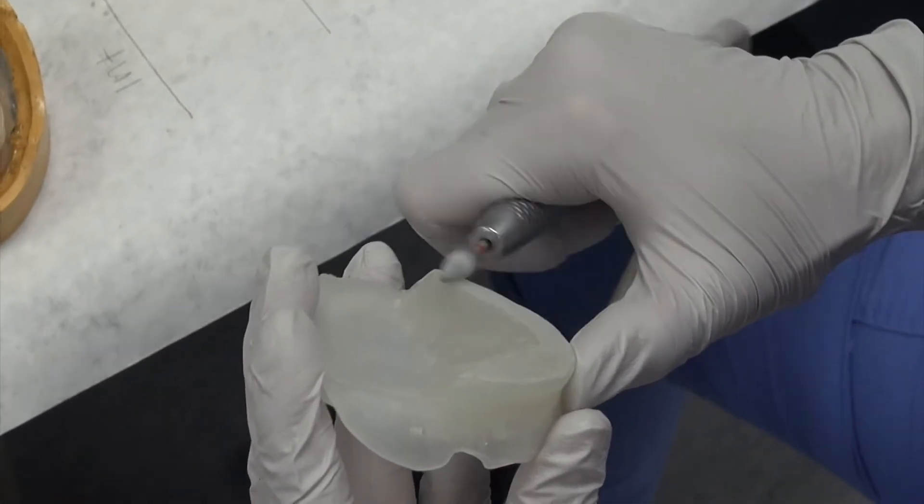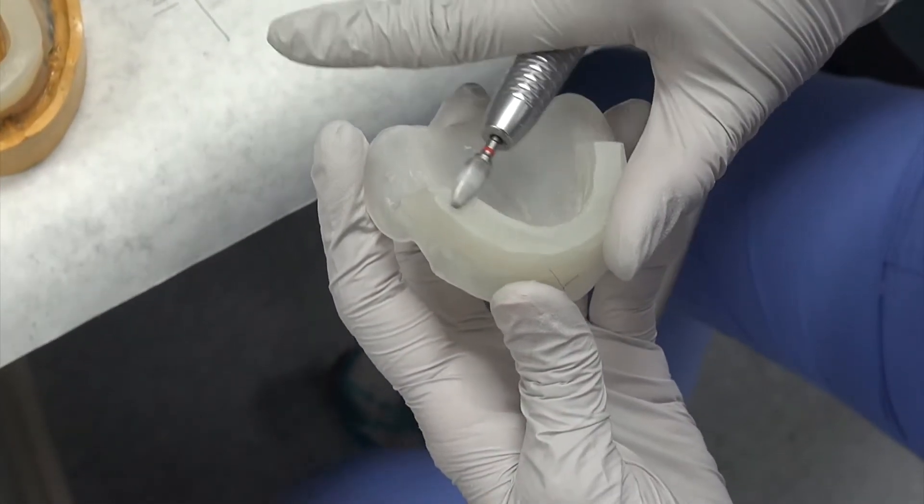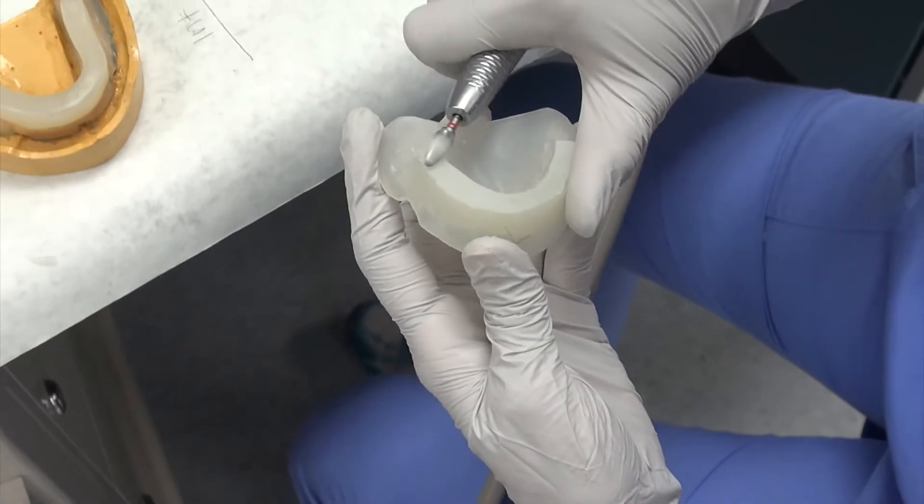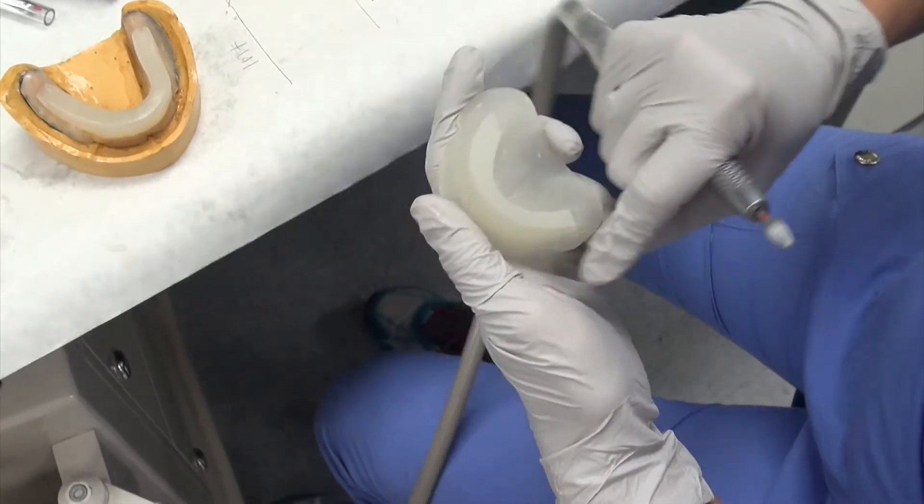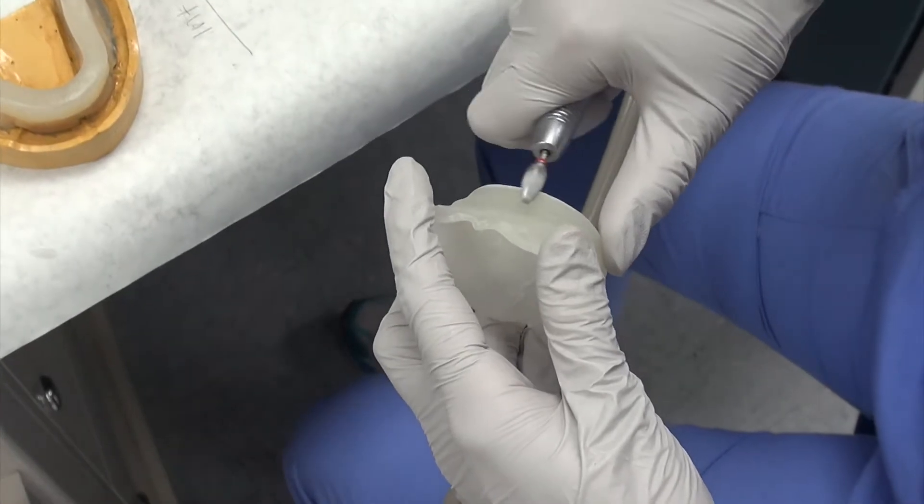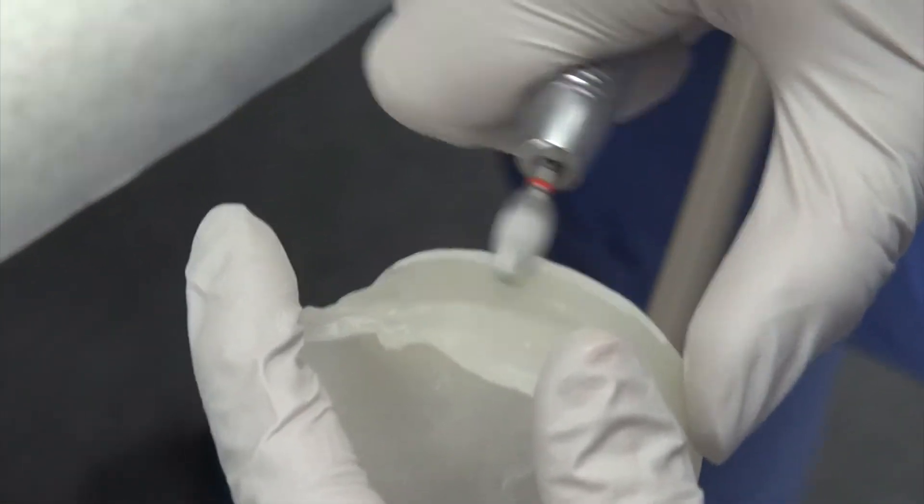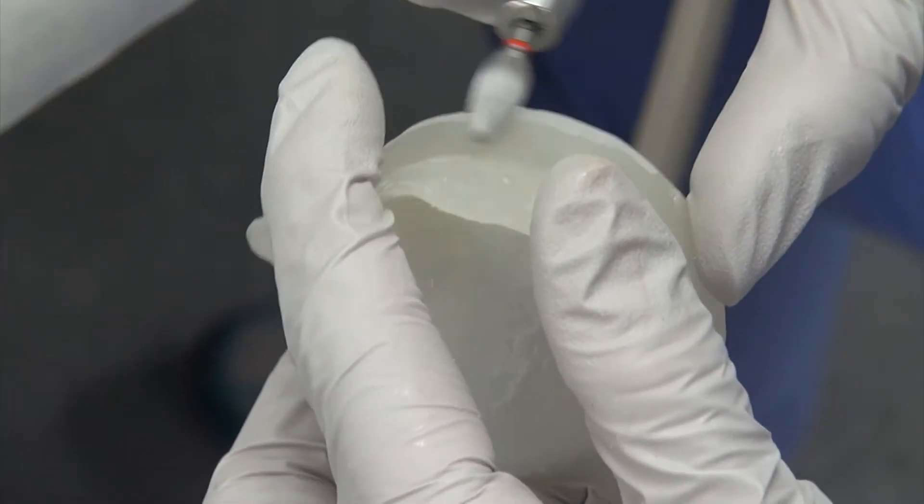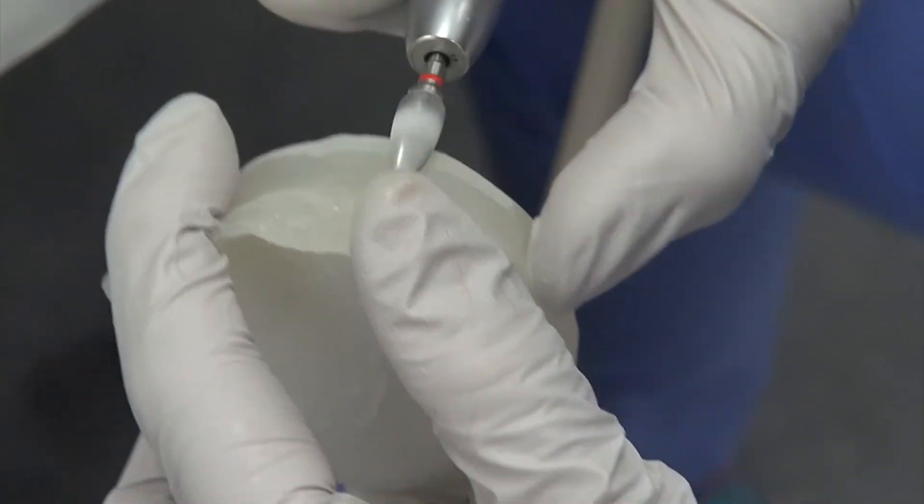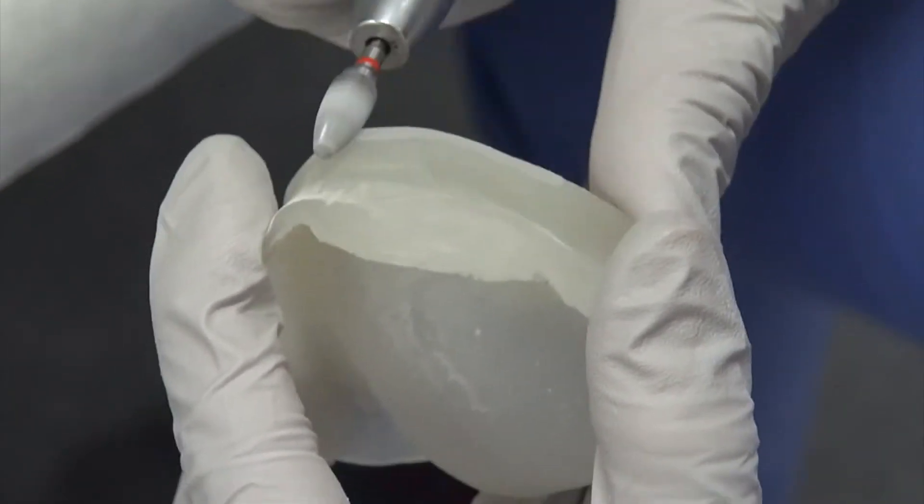And again, if you just kind of keep it moving, you'll create this smooth surface, fast moving. As opposed to if you do it slowly, you'll have lots of ugly streaks. And just thin it out. See, very fast swiping motion.